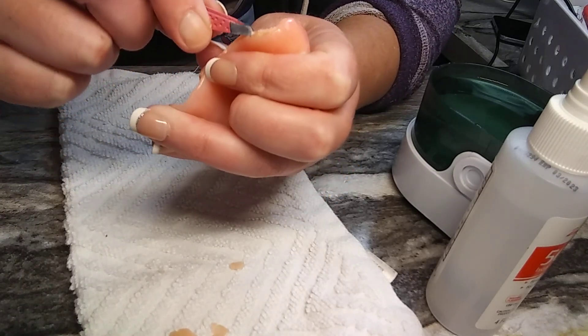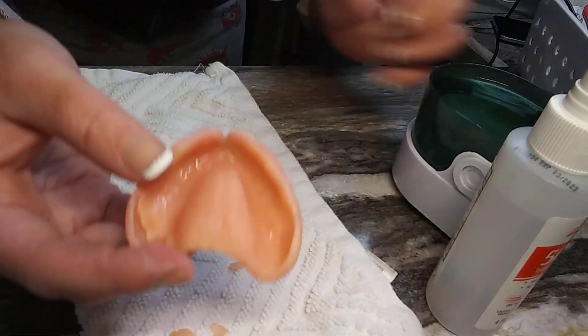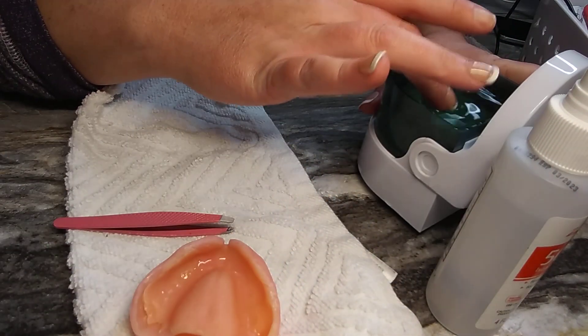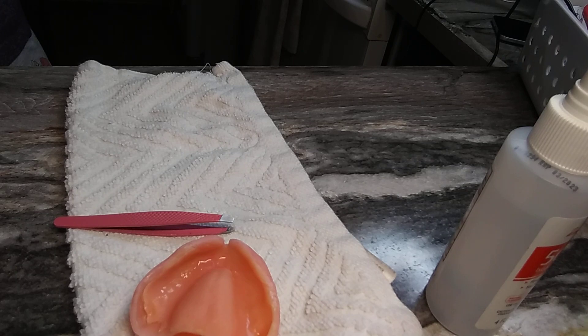This side is not going to be easy. I'm going to stick it in more hot water. You don't want to use scalding hot water, but you want it hot enough to melt and soften the reline so your life is way easier.